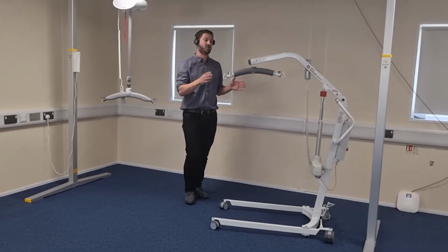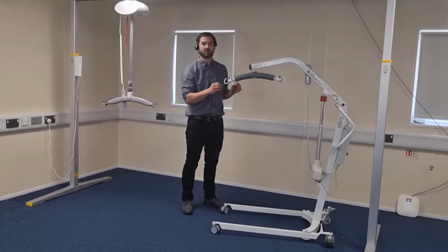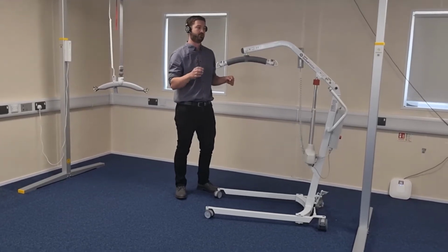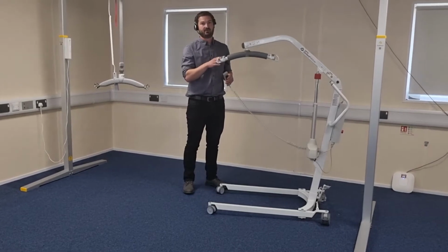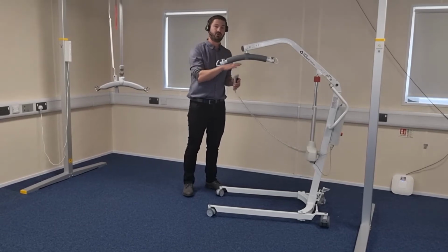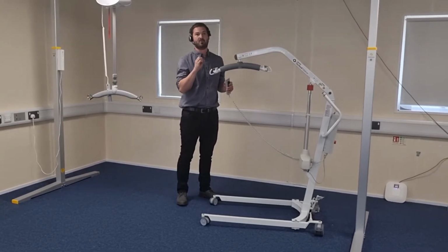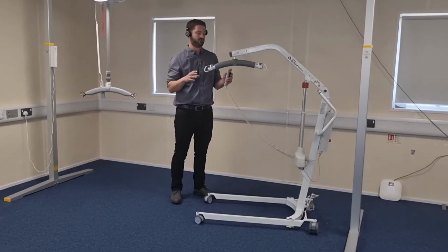Whereas with the mobile hoist, as you can see, there's a lot more metal work, a lot more framework to be considered when introducing this to a person on the floor. Also, I'm just going to demonstrate with this design of mobile hoist, the carrier bar comes closer to the mast as it is lowered to the floor. This affects your lifting point and how the mobile hoist should be introduced and positioned above your person on the floor. So I'm just going to take it down.